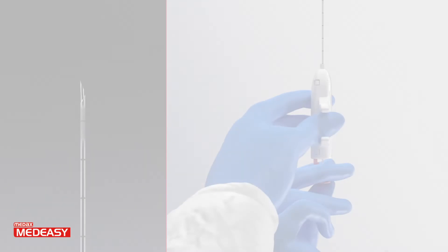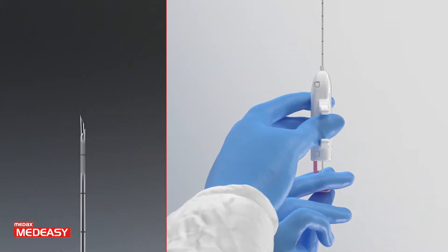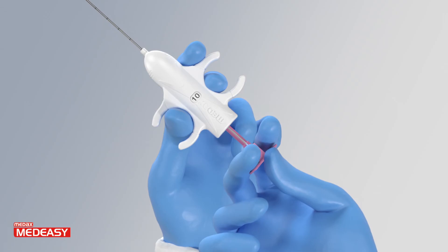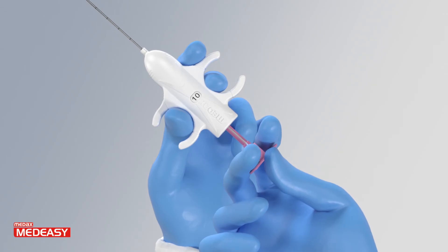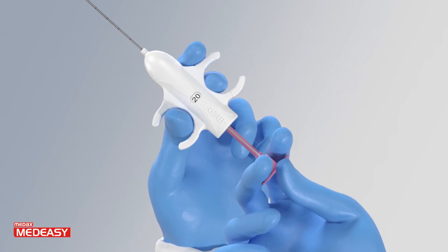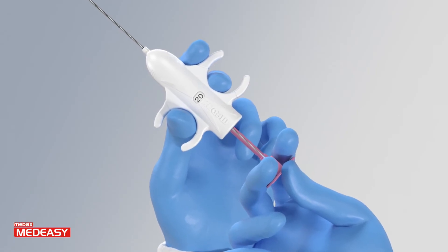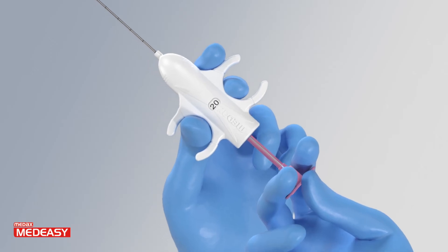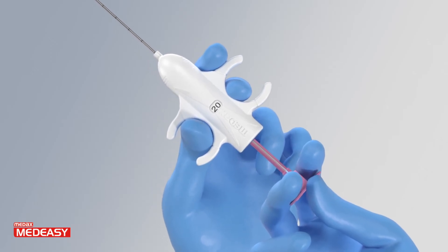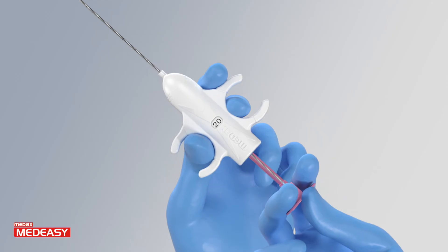Pull back the plunger to load the mechanism. First click gives 10 millimeter penetration depth, or second click gives 20 millimeter penetration depth. Penetration depth is clearly visible in the window on the handle. MedEasy is now loaded and ready to use.